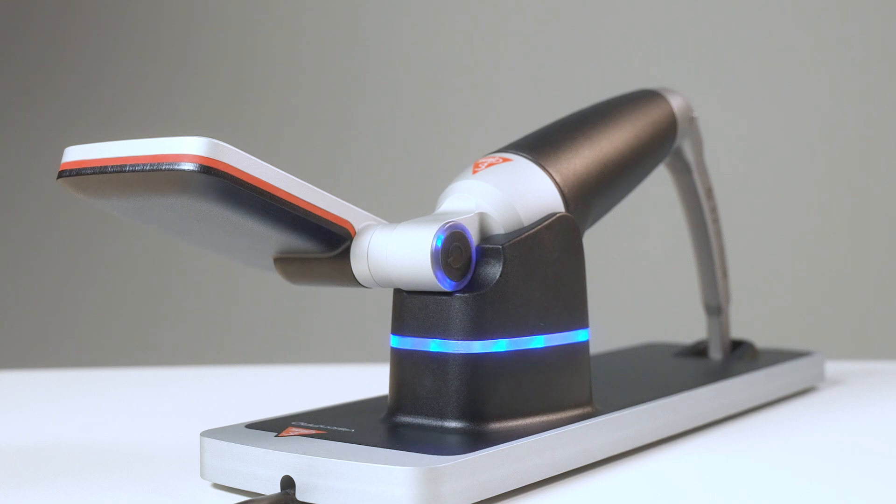Another practical tip: the charging station can perfectly be used to store the instrument. That way, your video laryngoscope is close at hand and easy to access. Using the charging station as a home base helps you to always keep the device present and in sight, and therefore theft might not be as simple.